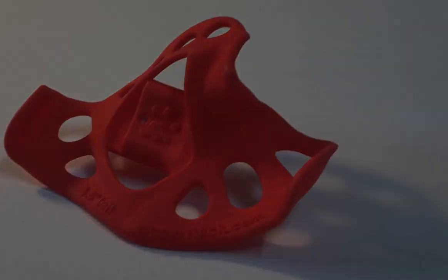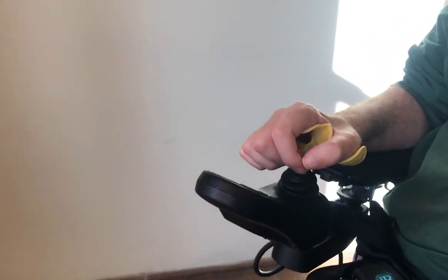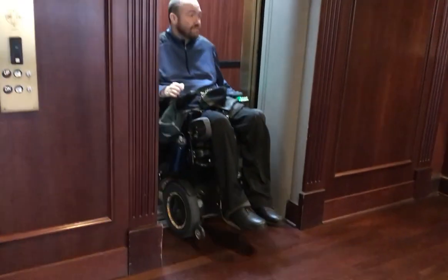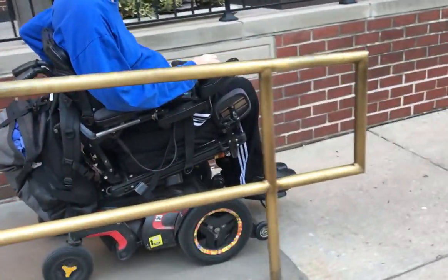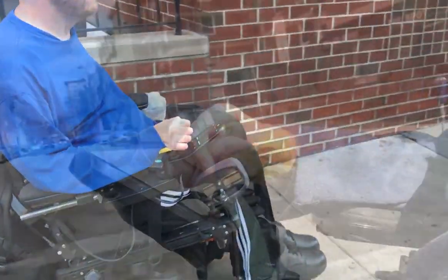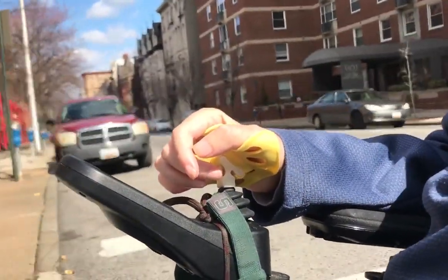This handle was designed for comfort. It can allow you to drive for hours straight without aching or finger cramps. As you go through your day, you will start to realize this attention to comfort is important — not just for heavy users, persons with arthritis, limited or no finger function, muscle weakness, or even fatigue. Feeling good just feels better.